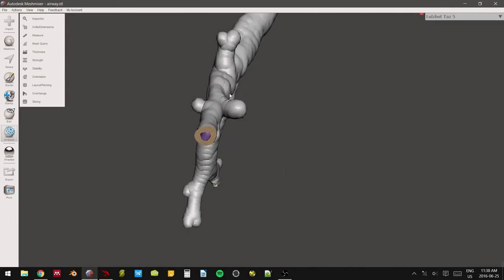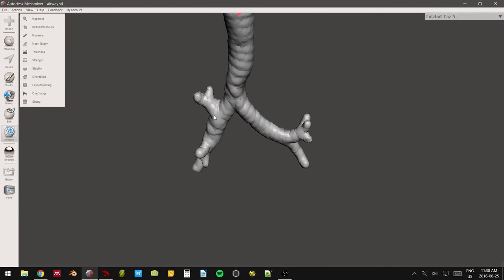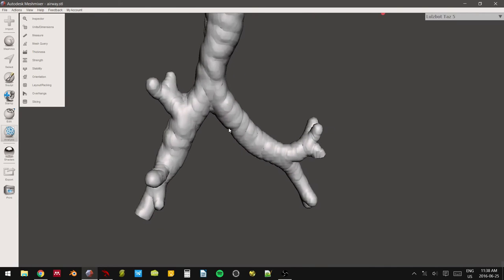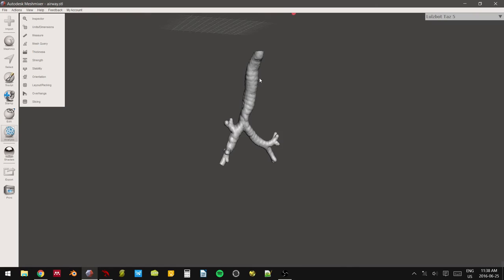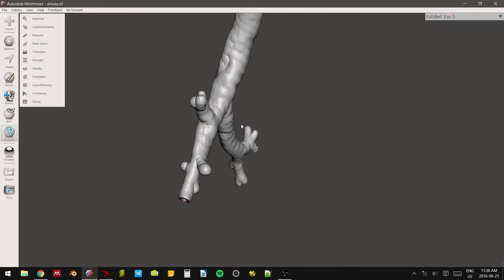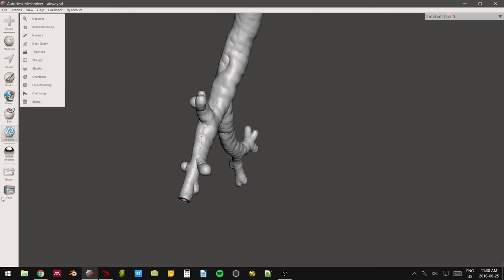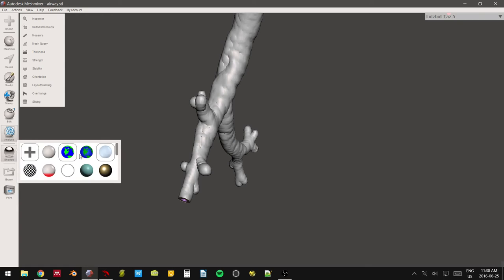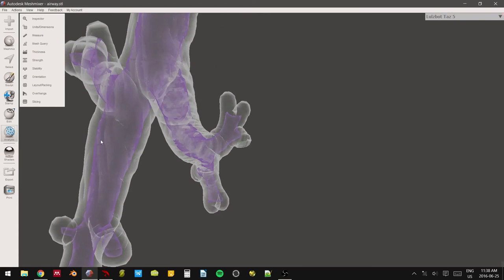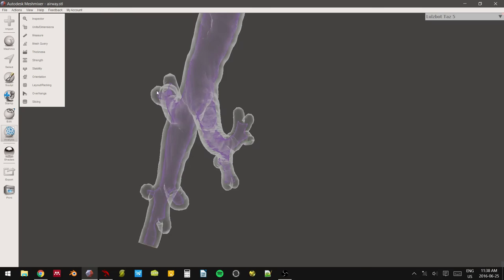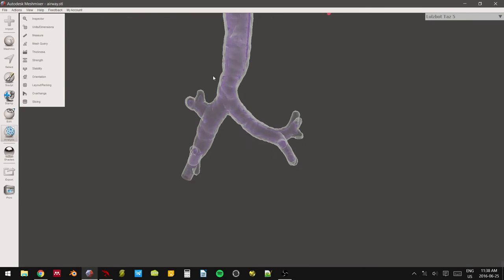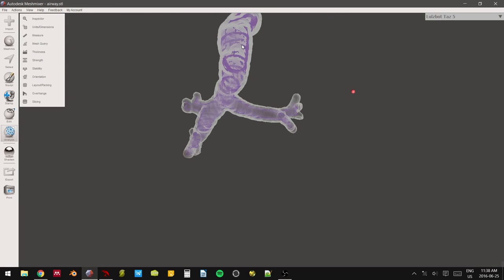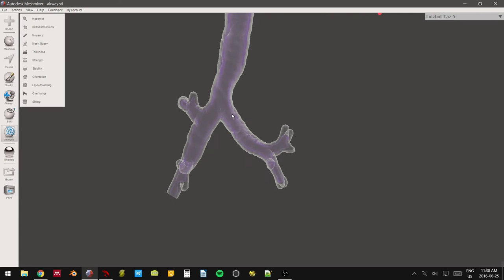So if we were to do supports on this right now as it currently stands like this, the program is going to freak out because these are severe angles that are the roof of this. Let's go in here. Wow, I really screwed up my mesh mixer. It's not doing it anyway. There we go. It's going to read this as a severe overhang. So it's going to put supports inside, or chances are it's going to put a ton of supports inside. We want this completely hollow. Otherwise, when the supports are actually in play, your bronchoscope is going to just hit them.